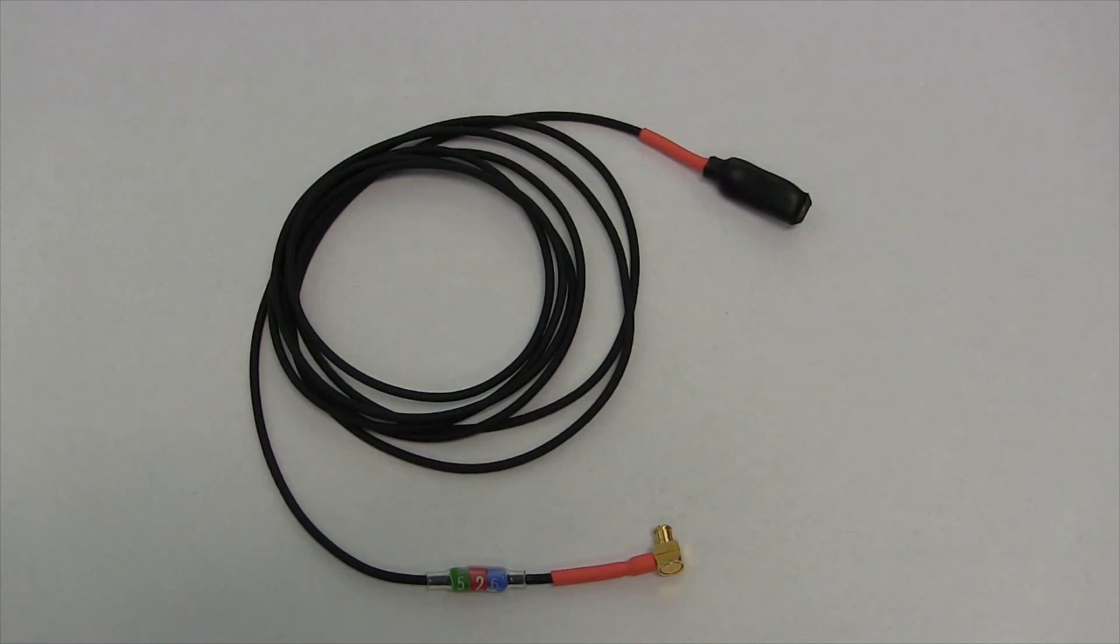This is a D4 detector. You'll notice it looks very much like a D1 detector, so to distinguish between the two, this one has a red sleeve around the end and also a red sleeve here to show its designation as a D4 detector. It also still has a serial number to identify different ones and relate it back to the calibration certificate.